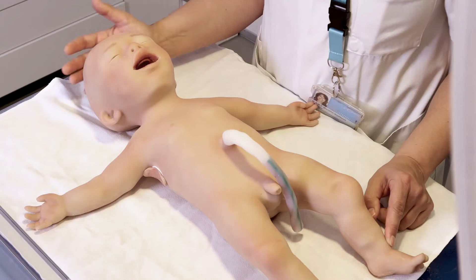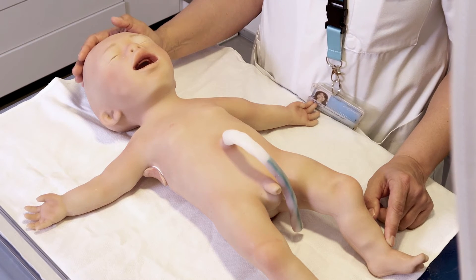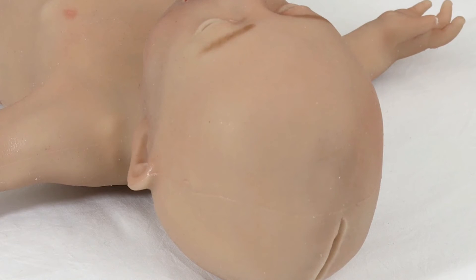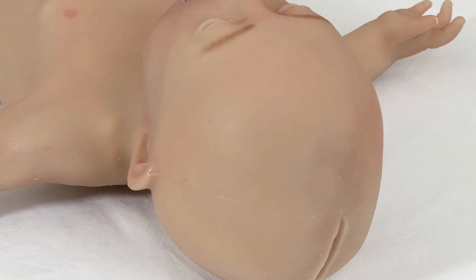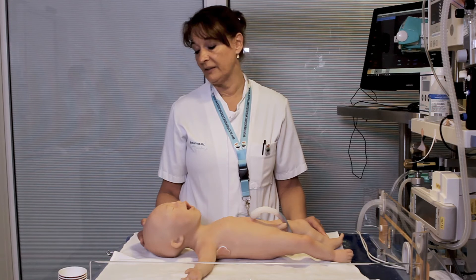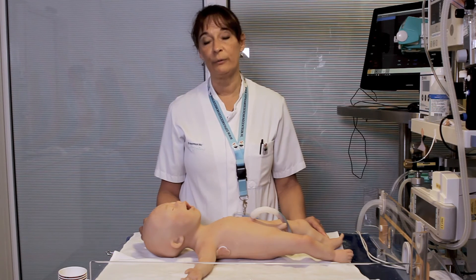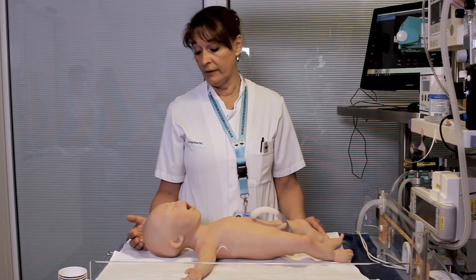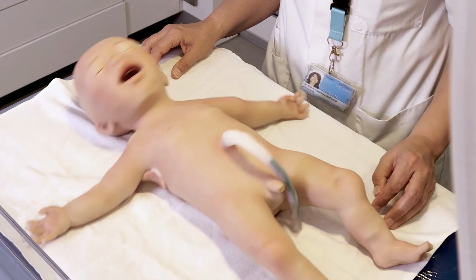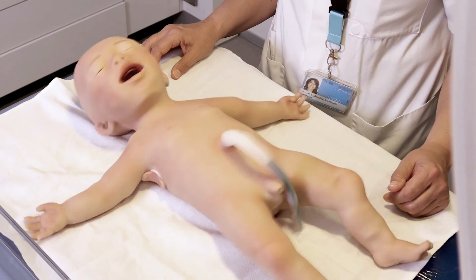The head is relatively large compared to the rest of the body, which relates to the software and hardware inside. Looking at the head, you can see the fontanelle, which can change position. The normal fontanelle is at the same level as the head bones. You can show a sunken fontanelle when the baby is dehydrated, and also a very bulging fontanelle for intracerebral pathology such as bleeding or meningitis. Combined with seizures, you can perform a scenario where the baby is seizing with an infection.